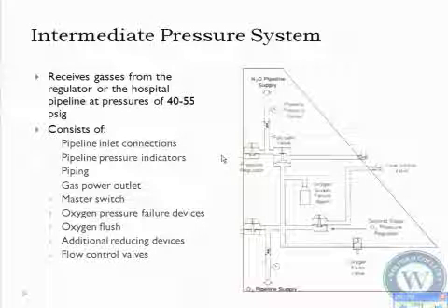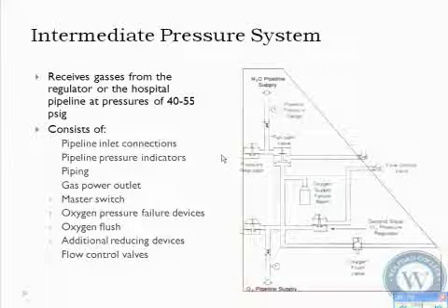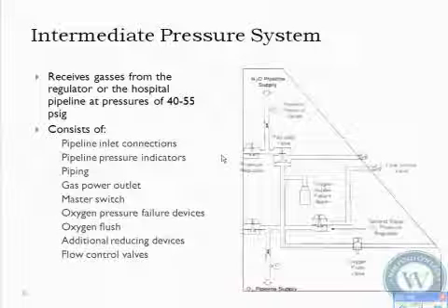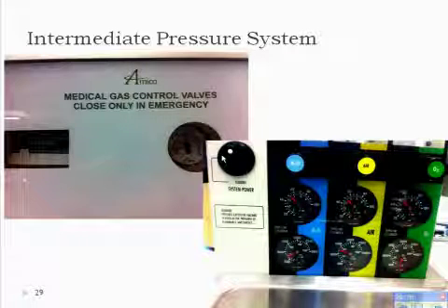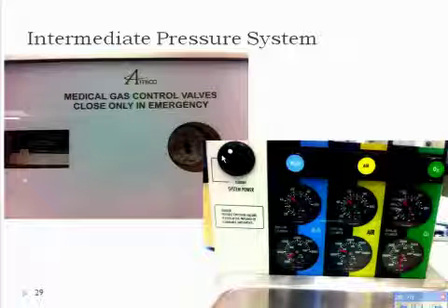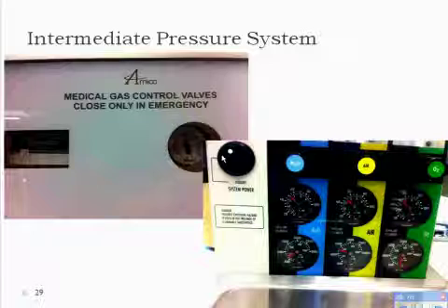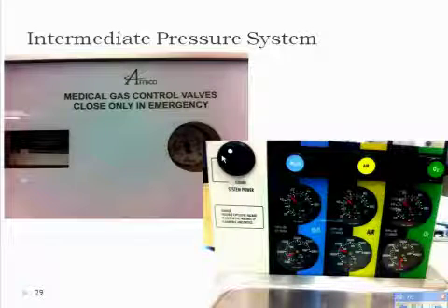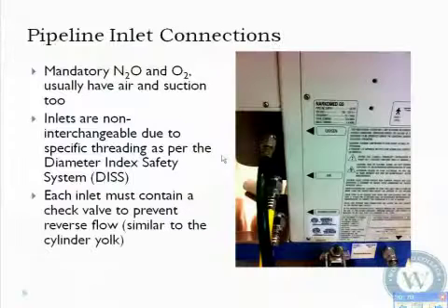And anything the patient wants or anything you give is going to go directly out of the expiratory limb. That's why it doesn't matter if you flush when they're spontaneously breathing with an open APL valve. Okay, this is just to correlate the intermediate pressure, showing that here is 50, and it's just hard to see here, but reading 50 on our wall right now, and then over here on your pipeline pressure under oxygen, it's reading 50 as well.